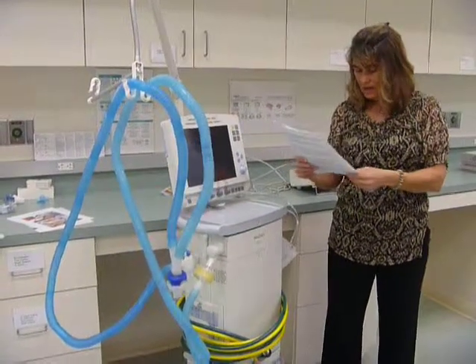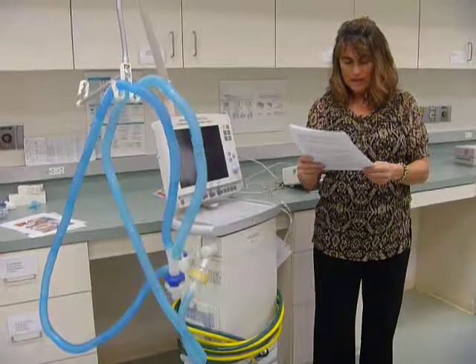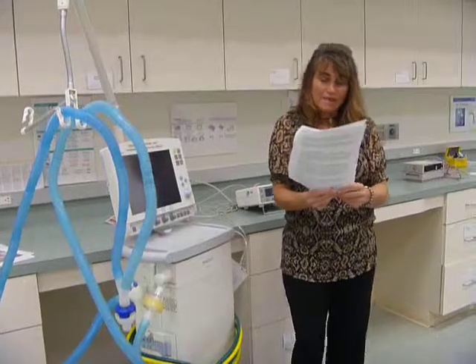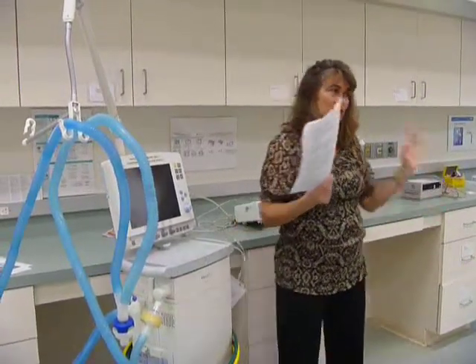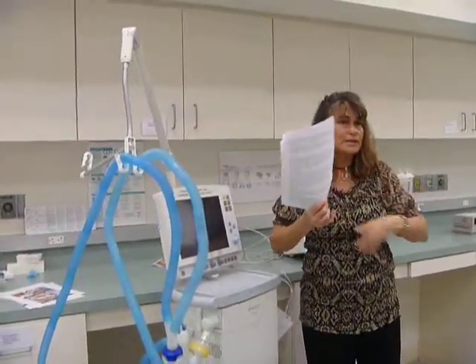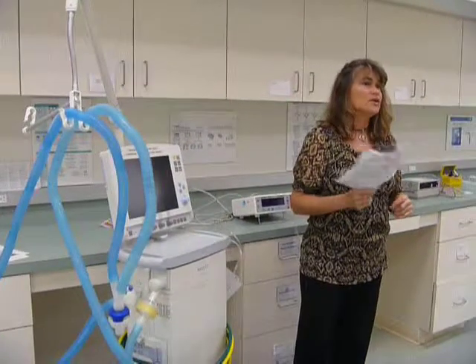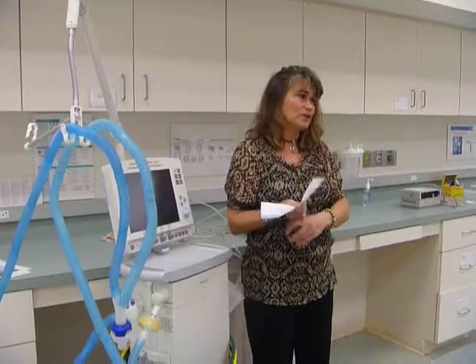Although an HME is at best about 80% as efficient as a heated humidifier, it is used on patients who are on ventilators, even if they are on a ventilator for a long period of time. And that has become an issue as of late. It seems like there's been a trend in respiratory where years ago everybody was on a heated humidifier, with the water chamber and the heat to deliver the moisture. Then they said, well, that's not necessary. We can use a heat and moisture exchanger. So then you see all the hospitals slowly switching over and everybody gets placed on a heat and moisture exchanger.